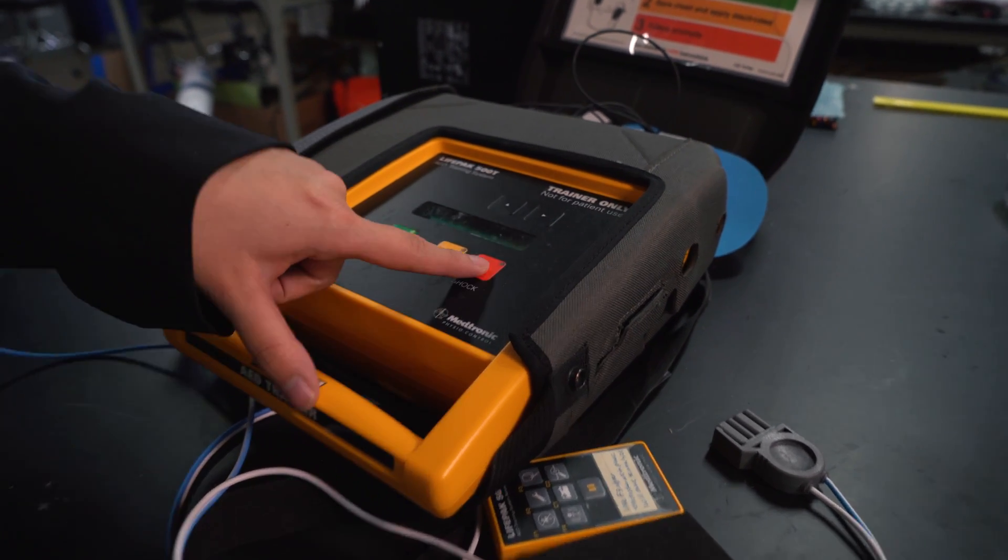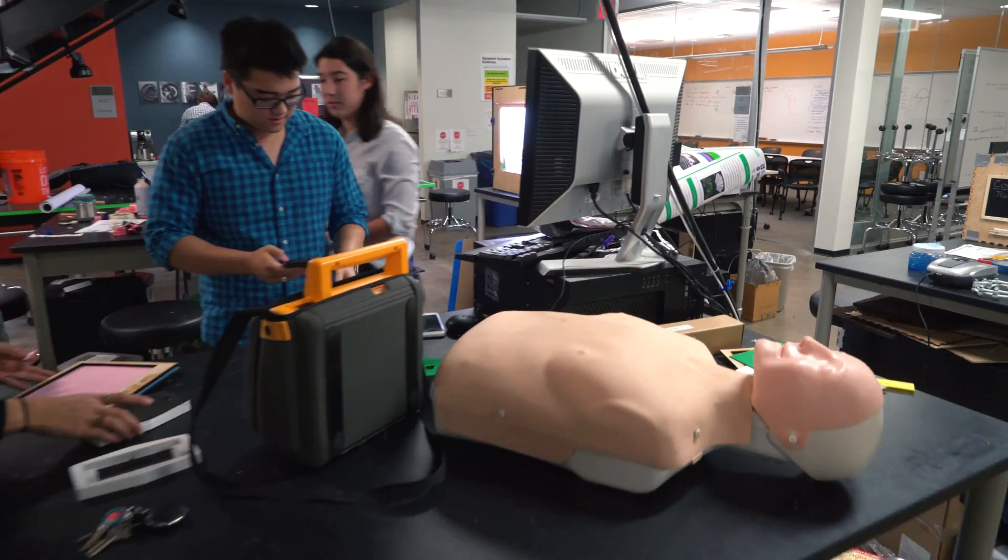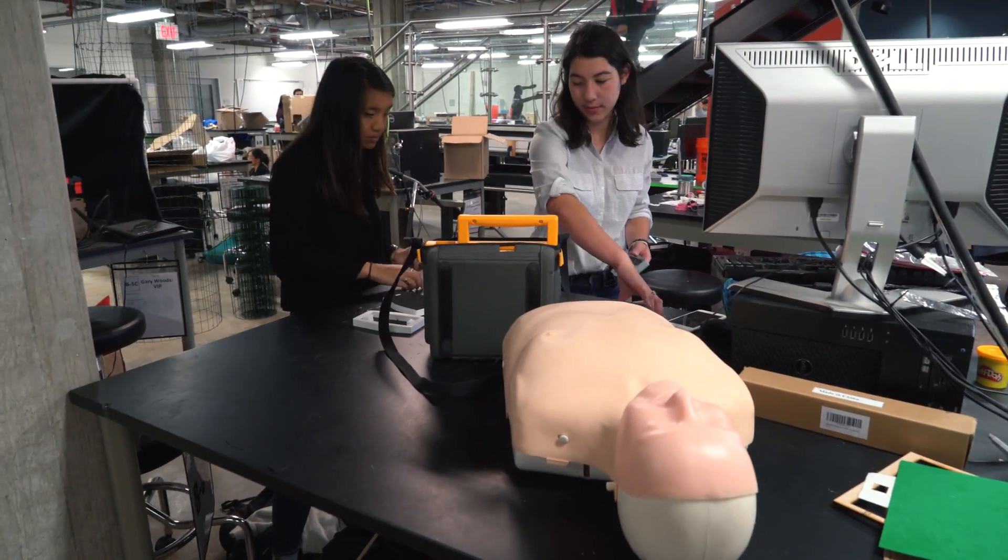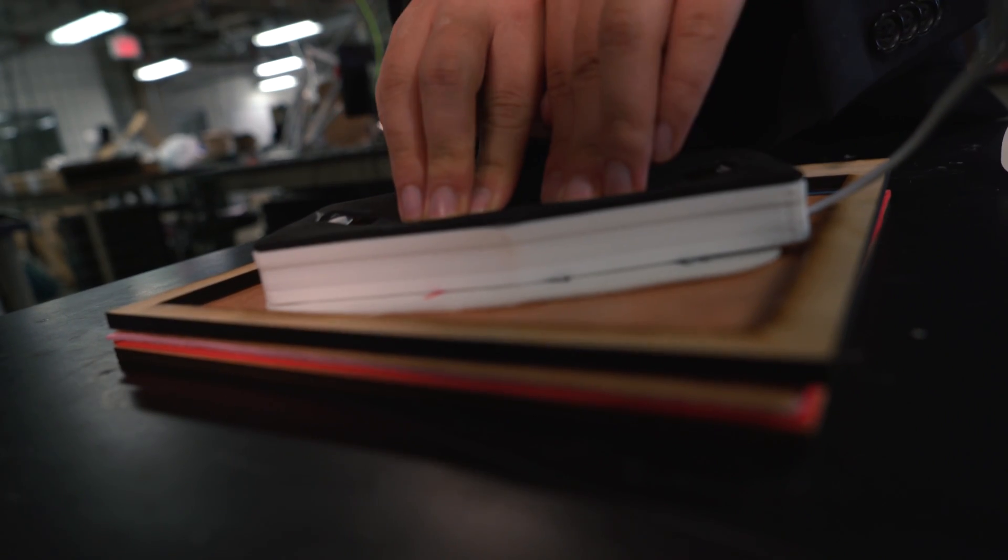These are more or less just stopgap measures until you get to the hospital. While they are good, some of the problems they run into include having to use multiple shocks to deliver enough current to the heart to restart it. Our project is basically looking to decrease the number of shocks and improve the survival rate of these patients outside of the hospital.